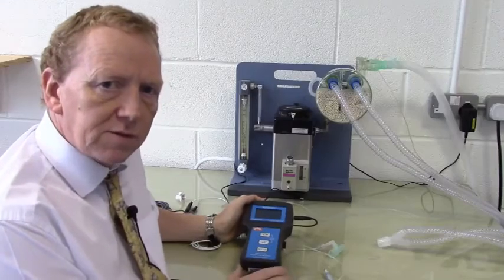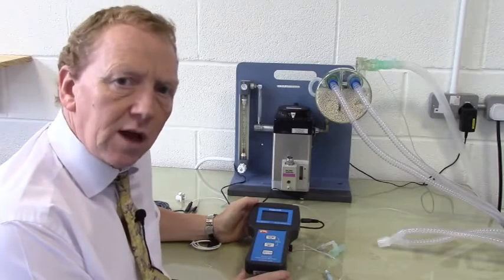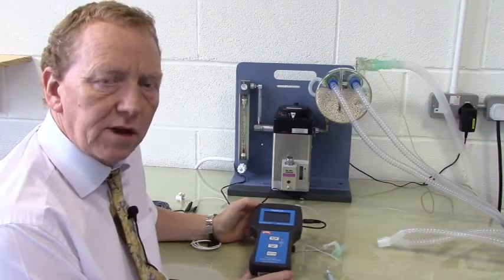This video describes the main features of the Impact 3 multi-monitor and just shows how easy the unit is to use and how it can be used in practice, and the salient points regarding connecting it to the anaesthetic circuit and to the patient.